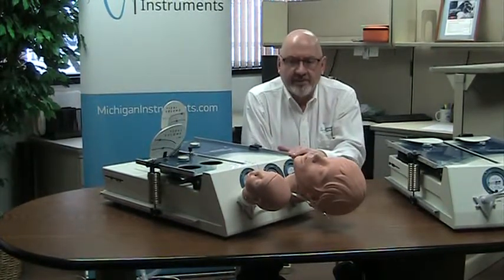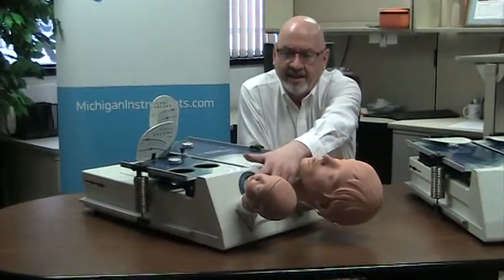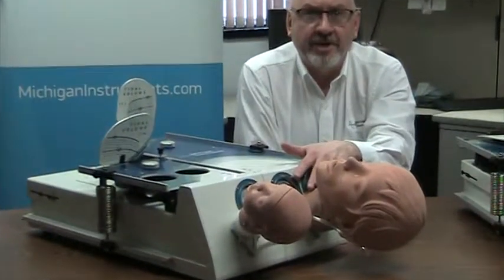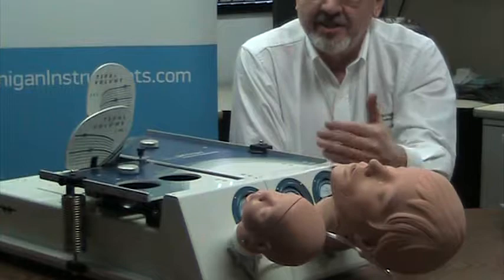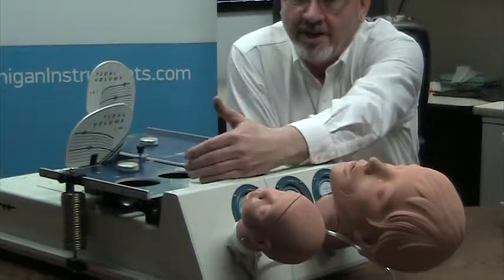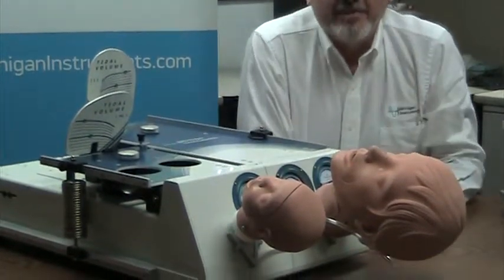On this particular setup, I have also applied the infant and adult head simulation modules. The intention is that you use one of these lungs or the other, and you don't use them in tandem typically.